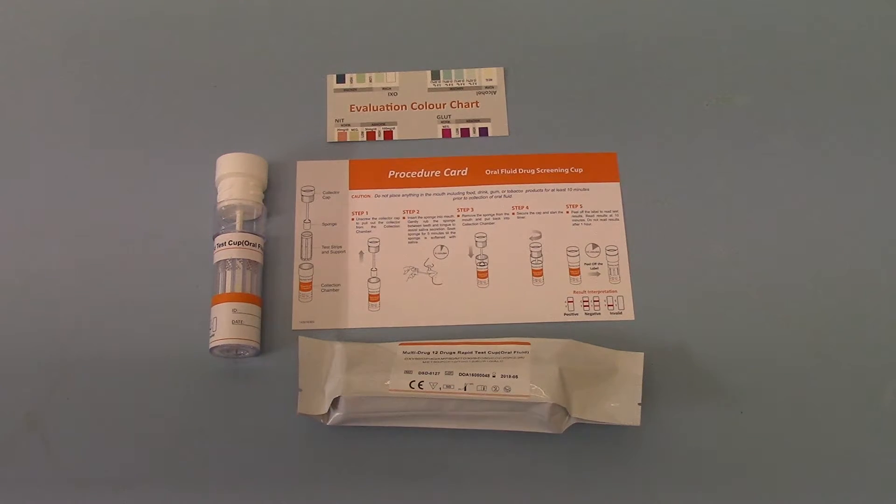Welcome back to part 2 of this product demonstration for the DSD-812-7 12-drug saliva screening test kit from UK Drug Testing. I'm just going to run you through the elements that are contained in the pack.